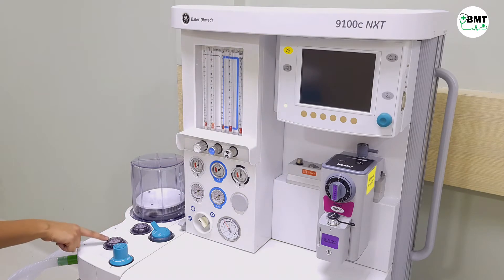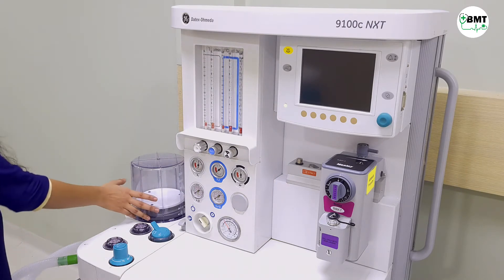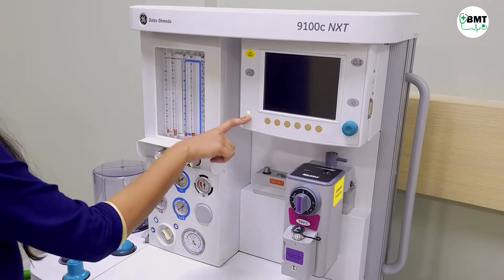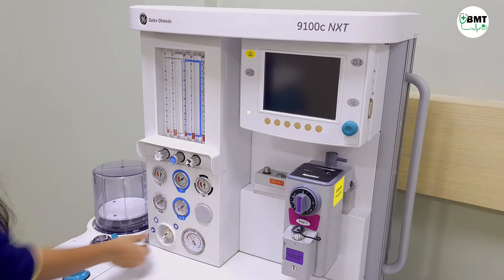These are the inspiratory and expiratory valves. These are the bellows. This is the main indicator. Now, power on the machine.